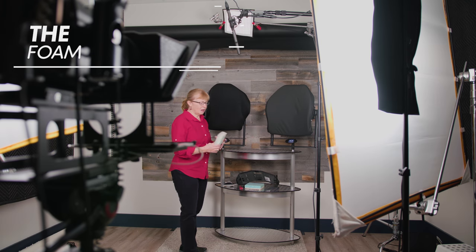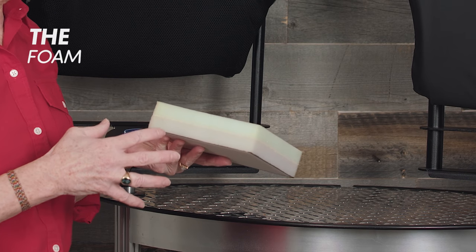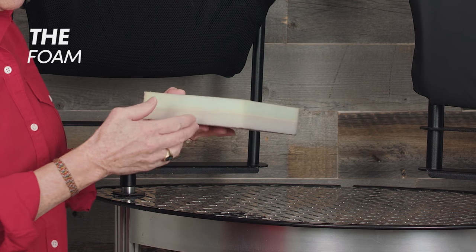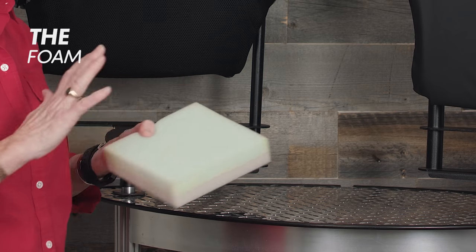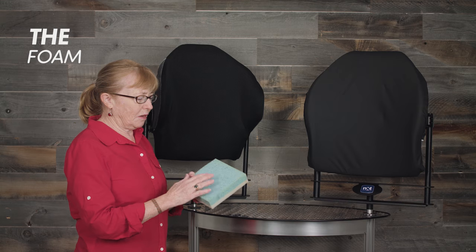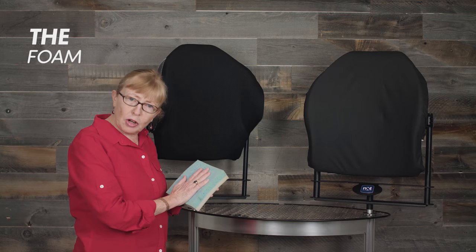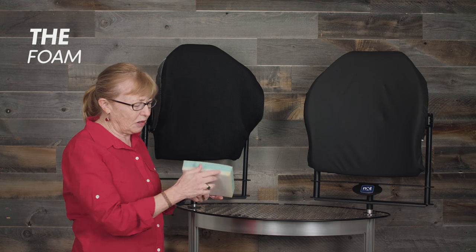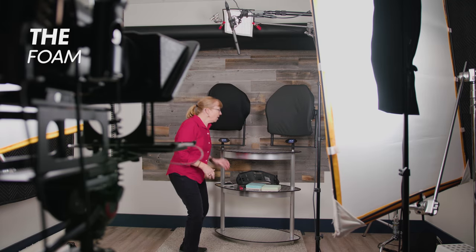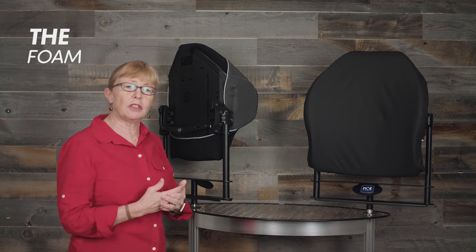The foam under the covers comes with a dual softness: we have high-density foam for good quality, and on the part closest to the client it's a soft foam, and then a firmer foam to give support so that you're not bottoming out. You also now have the option of a visco — this is gel-infused viscoelastic foam — a little better for contouring for the client, but we also still have a layer of polyurethane foam to protect the client from bottoming out.